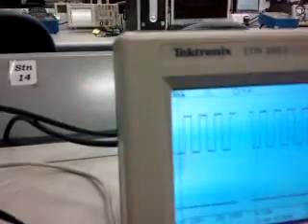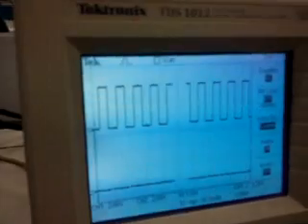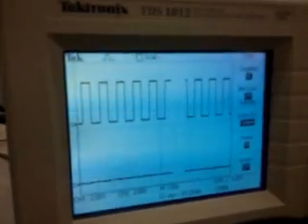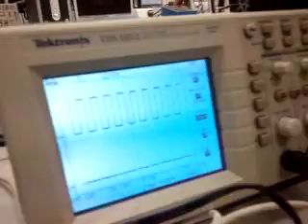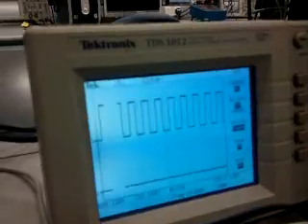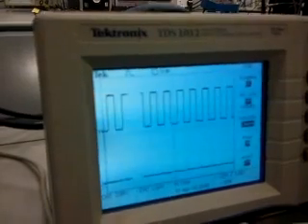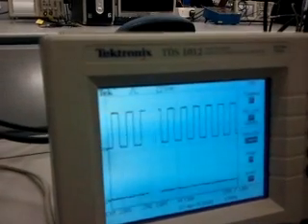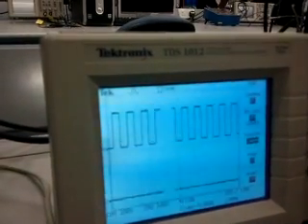Who's going to see? Duration of infusions, we'll give it as 5 minutes. Calculate the flow rate. Now, infusions has to start now, so we are giving 0-0, loading the values, submitted, and started.